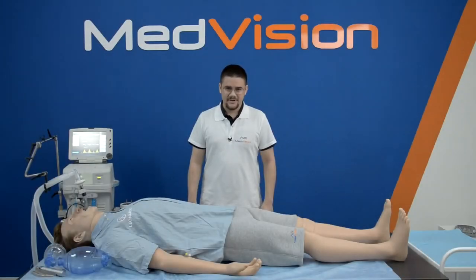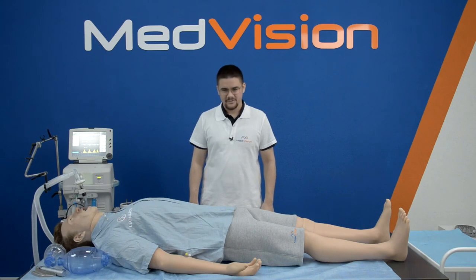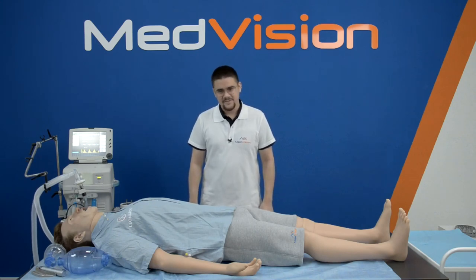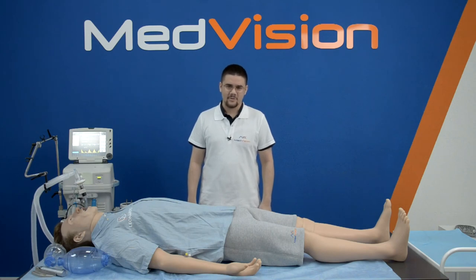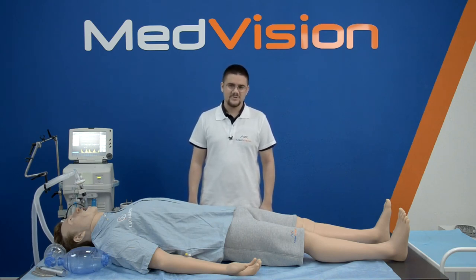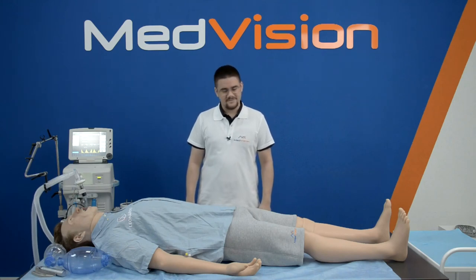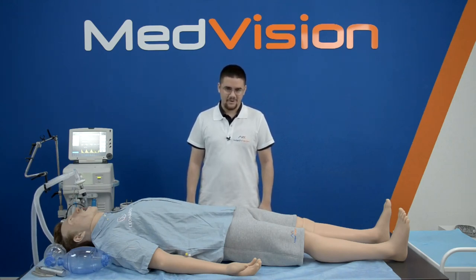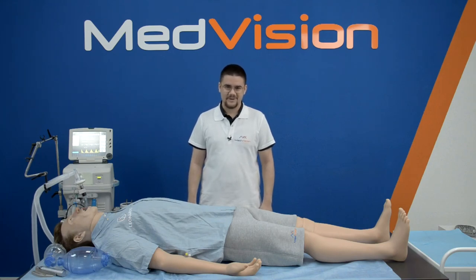This concludes our video about our highly realistic patient simulator Leonardo. If you would like to see other videos about the broad portfolio of MedVision's patient simulators — for example Pediatric Arthur or Neonatal Mia — please go to our website, YouTube channel, and Instagram, or book a live demo and visit our showroom in the many countries where we have offices. We'll be happy to see you. Thank you, bye-bye.